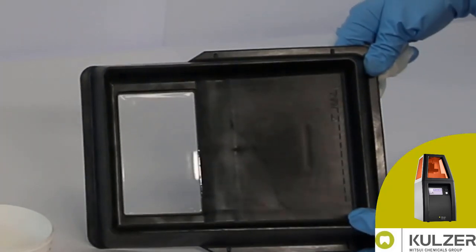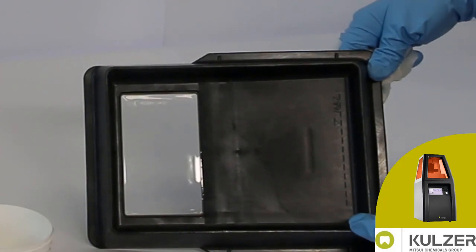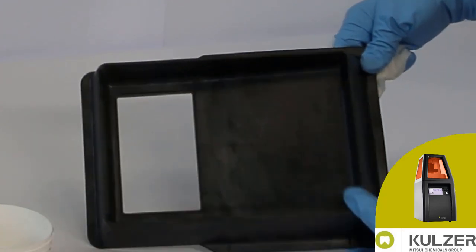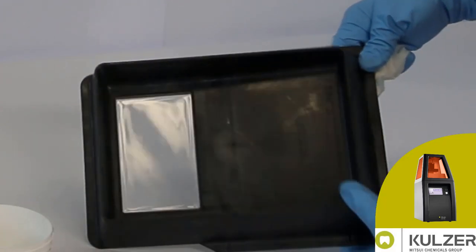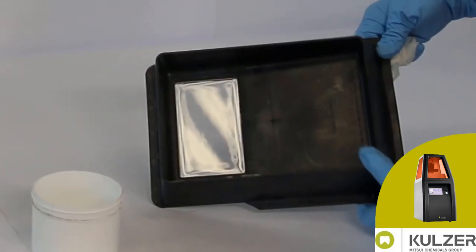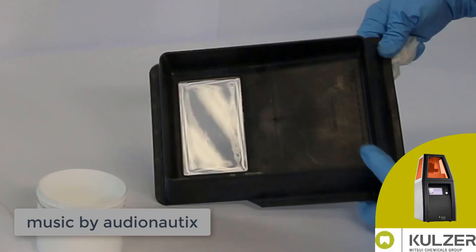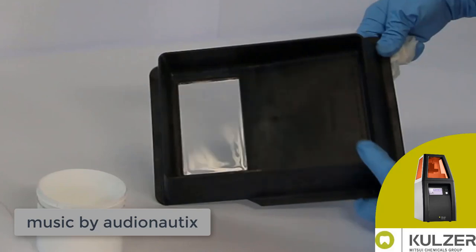This gives you a streak-free result without scratching the film in the projector window. The resin tray is now ready for the next material and the next print. The cleaning of the resin tray is necessary for every material exchange.